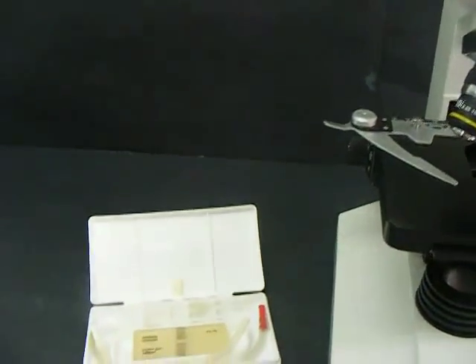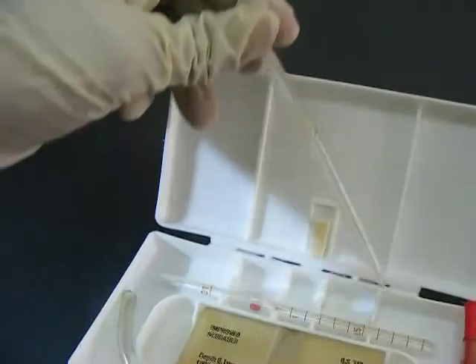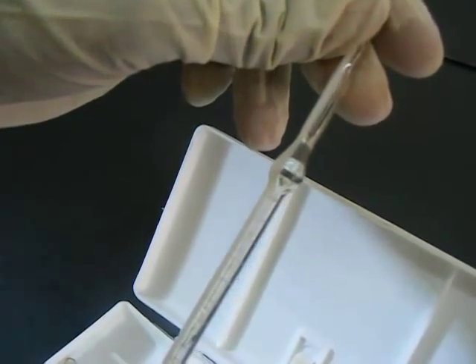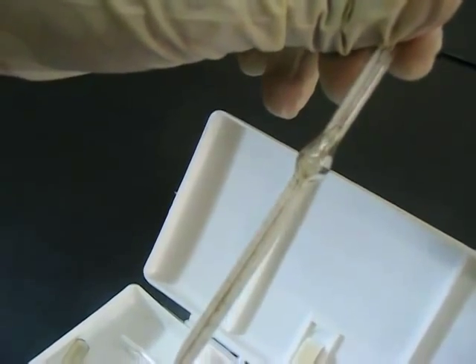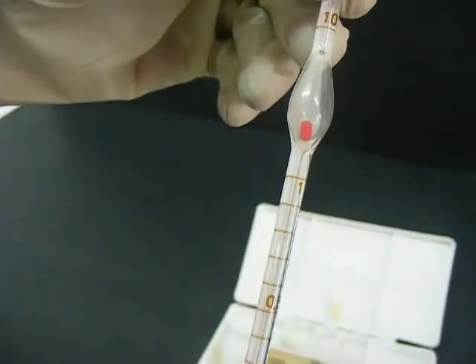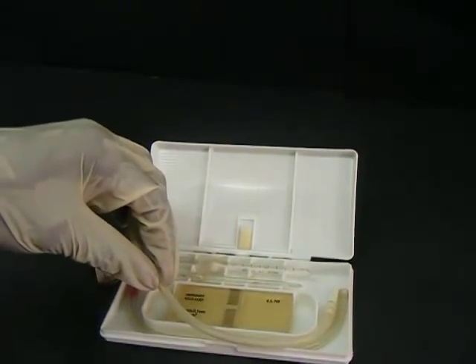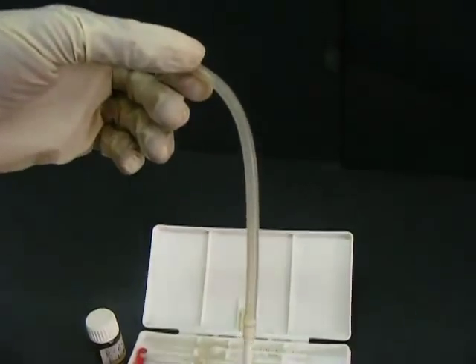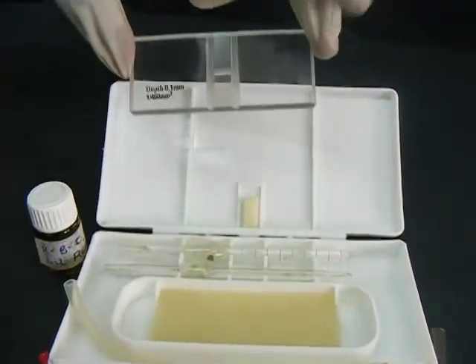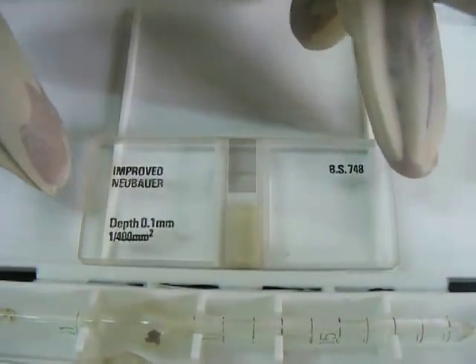In performing a white blood cell count, a microscope and a hemocytometer apparatus are needed. A hemocytometer apparatus consists of a white blood cell pipette, a red blood cell pipette, a cover slip, a plastic tube, and an improved Neubauer hemocytometer of depth 0.1 millimeter and area 1/400 millimeter squared.